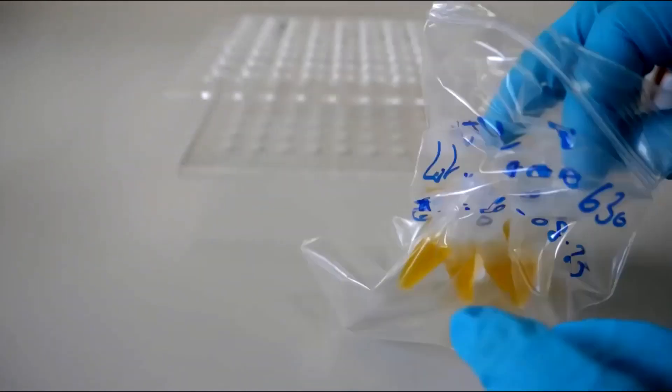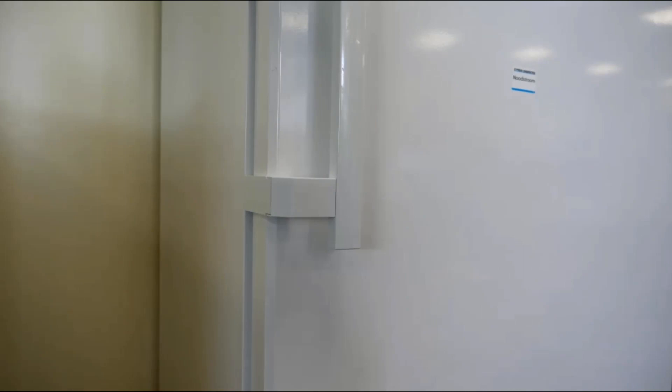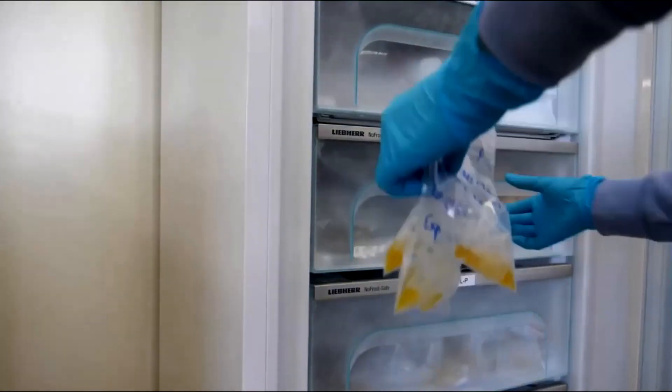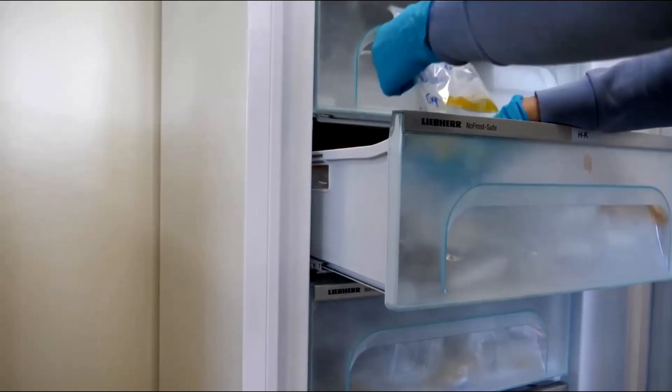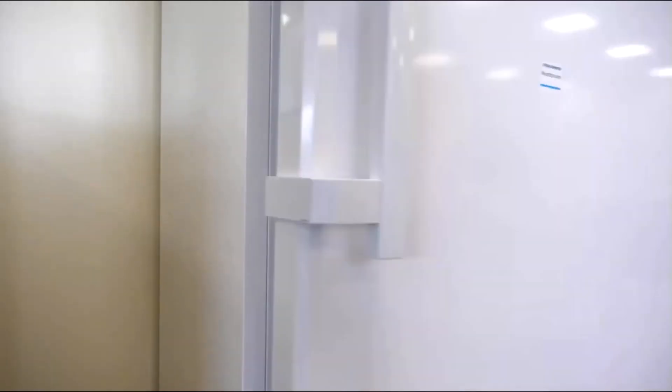Be sure to store each aliquot upright, between minus 25 and minus 15 degrees. Do not freeze and thaw each aliquot more than once and do not use beyond the stability period or when contamination is suspected.